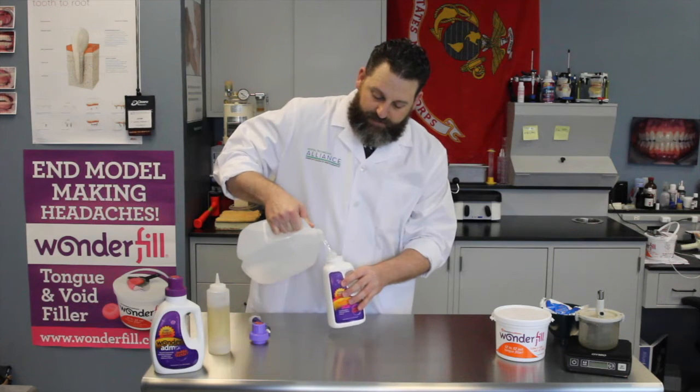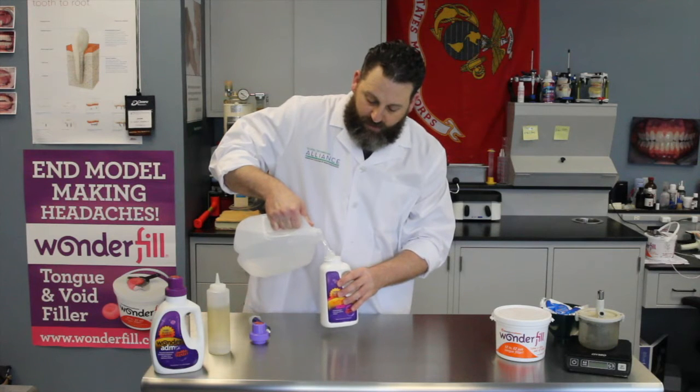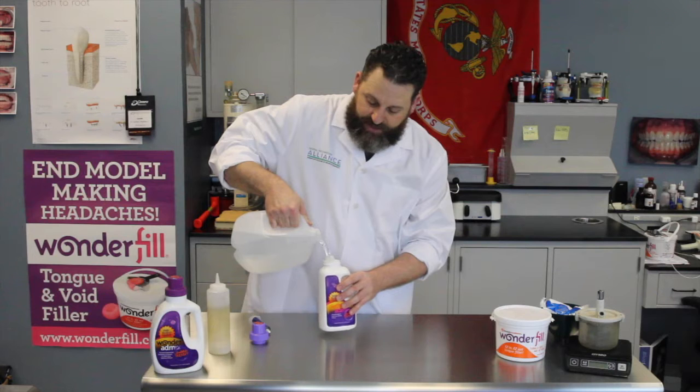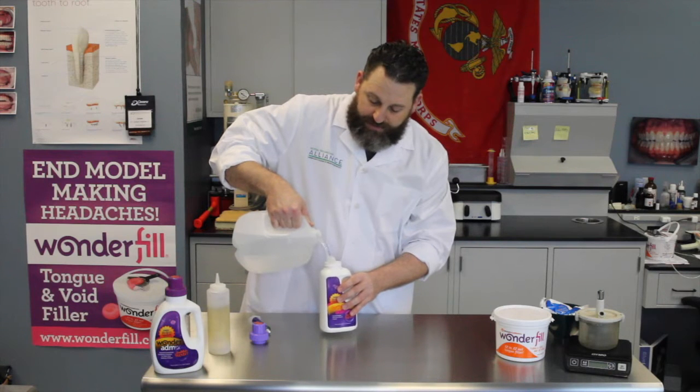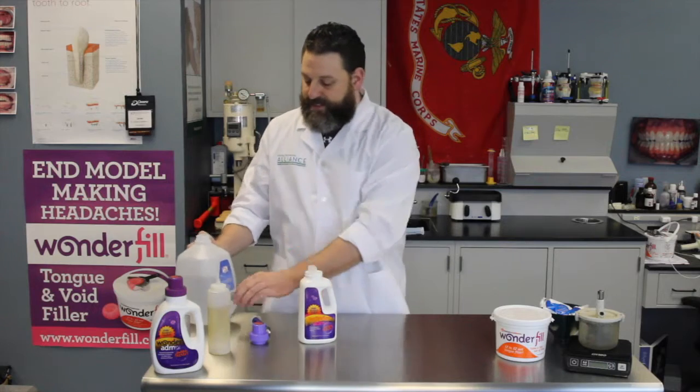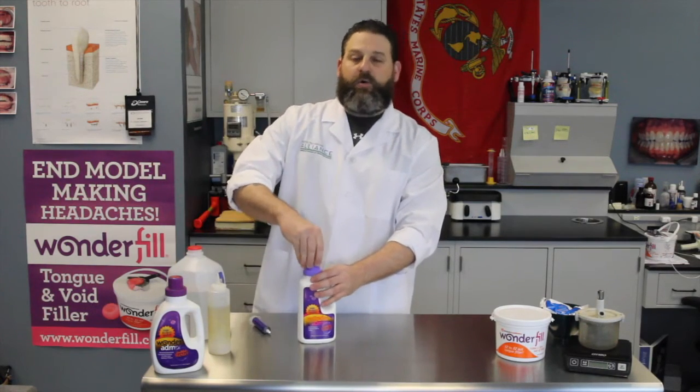So we already have the distilled water, so go ahead and use the distilled water and fill up your container. You want to fill it all the way up, try not to spill it all over the place. We've filled it to the top with distilled water and then we're going to shake it up.